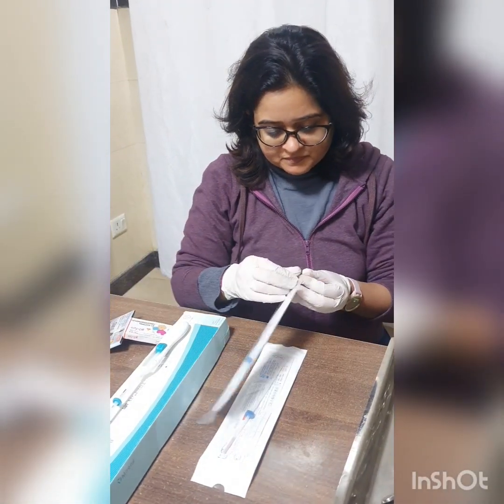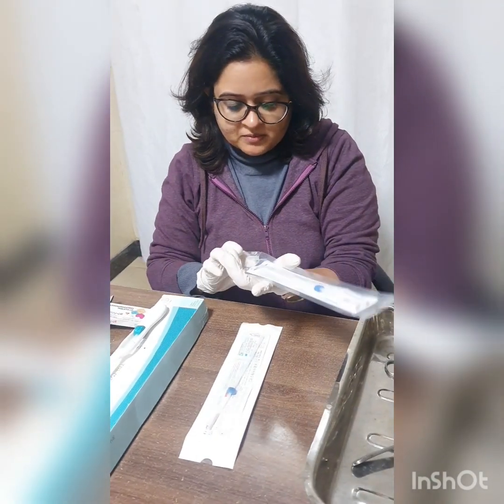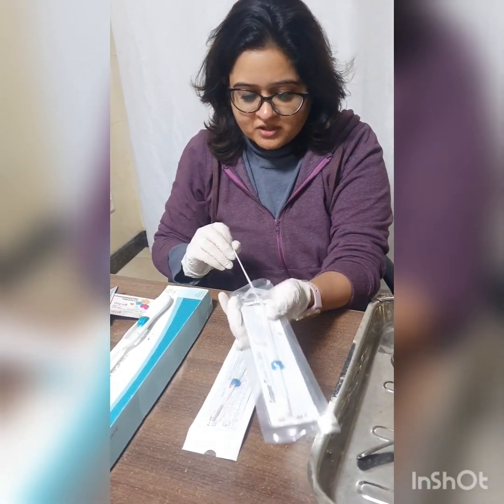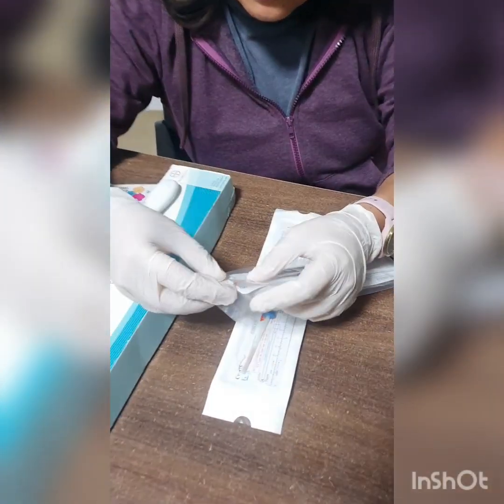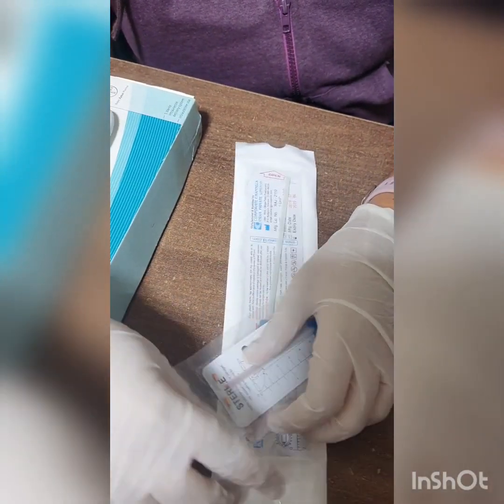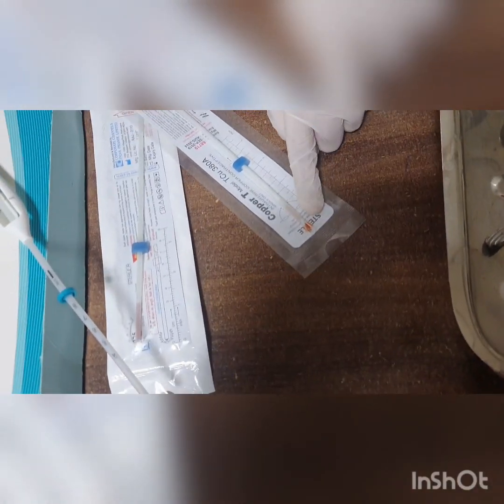I will show you how loading is done. We take the plunger out from the bottom, then insert the plunger back inside, and from the top we fold the arms of the copper T inside the inserter. The arms are loaded without taking the copper T outside — this is to maintain sterility and avoid infections. You can see that the arms have been loaded inside the inserter.